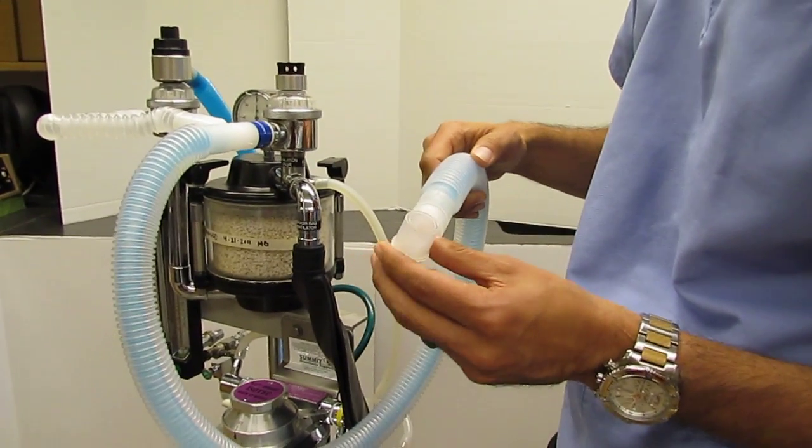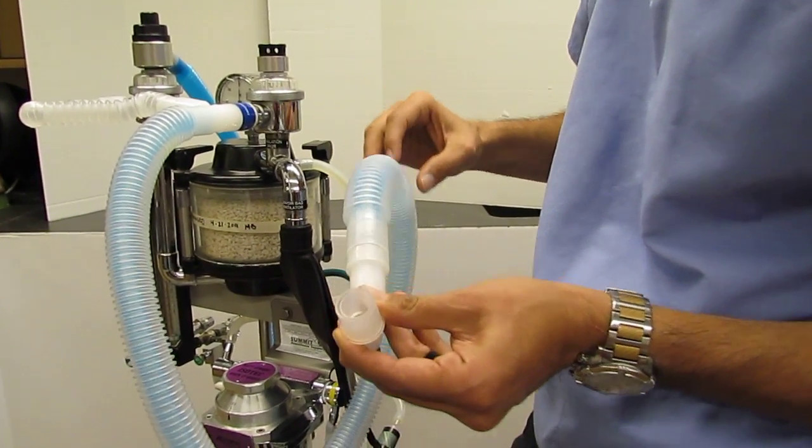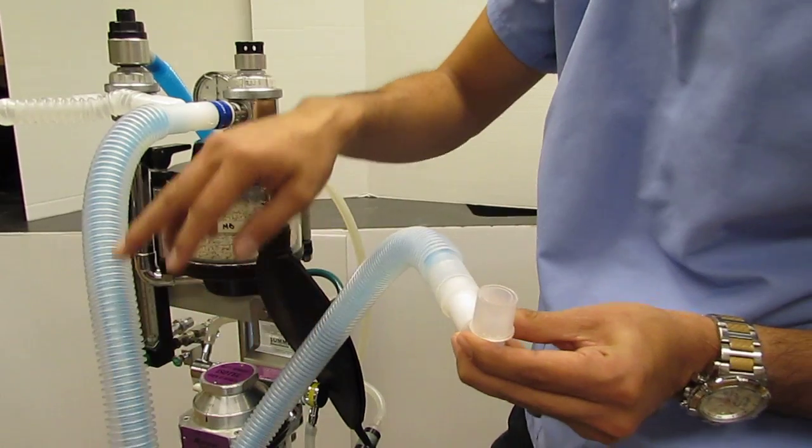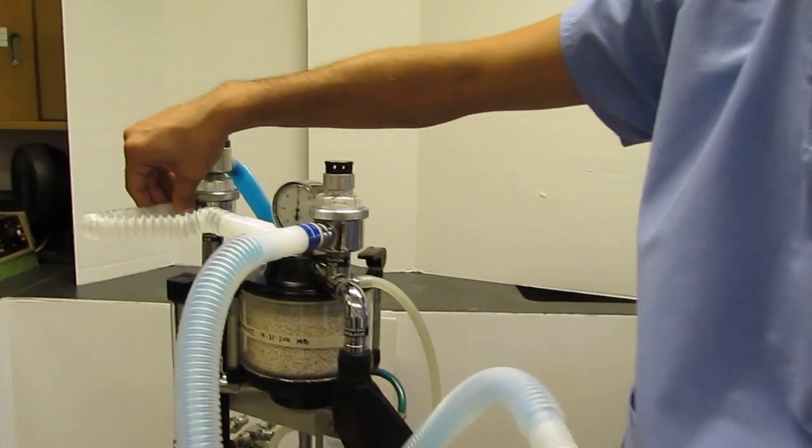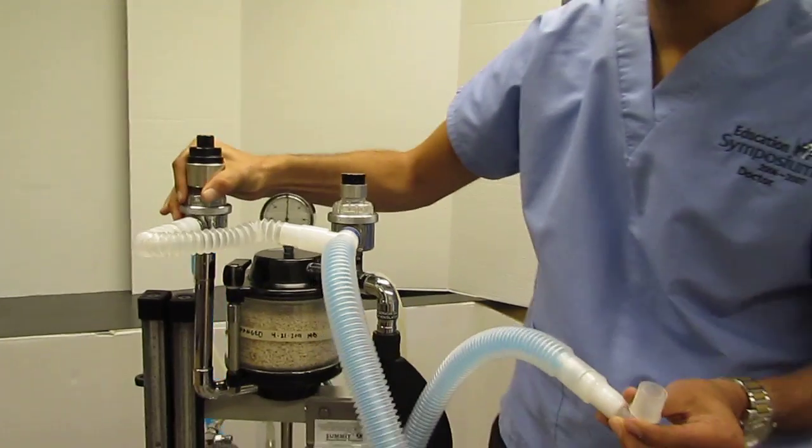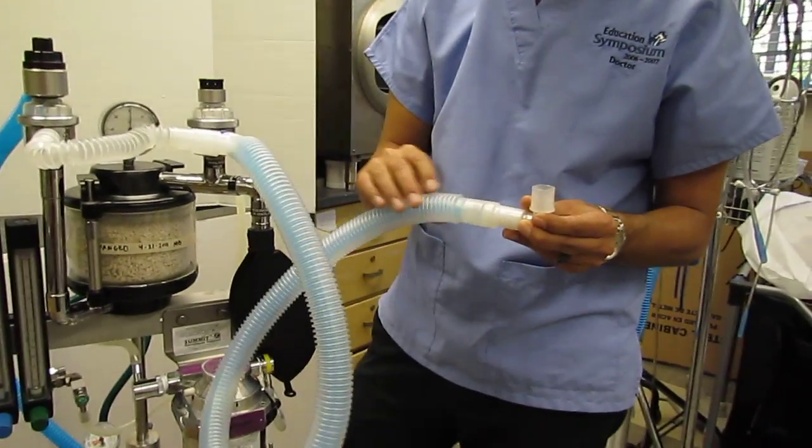So, when the patient exhales, they exhale into the outer tube and exhale into the outer tube and to the exhalation unidirectional valve.